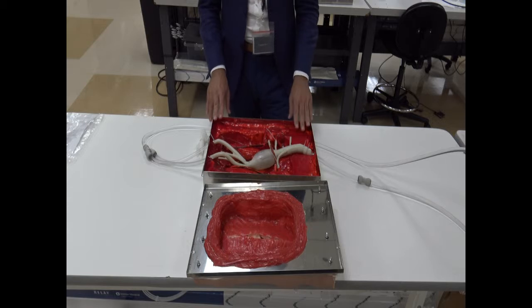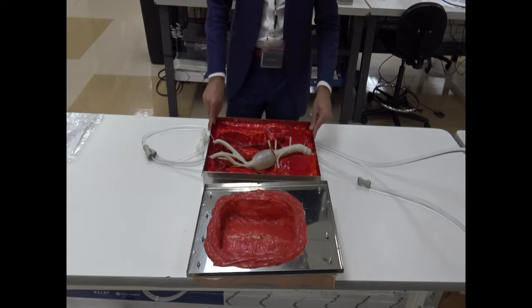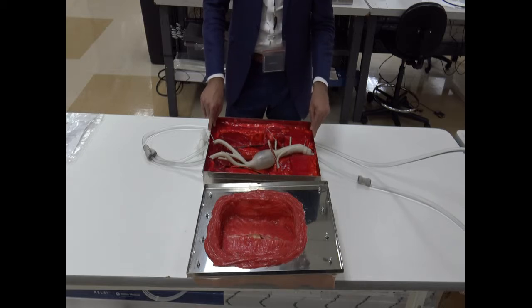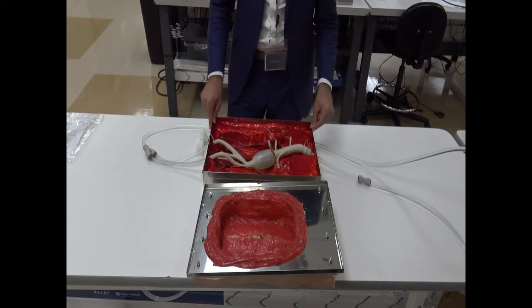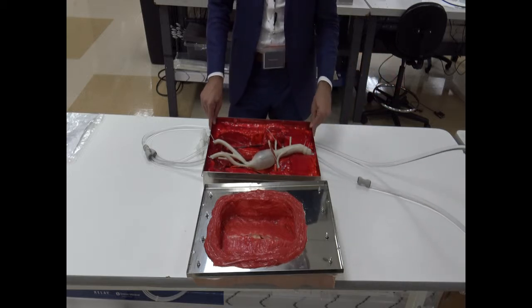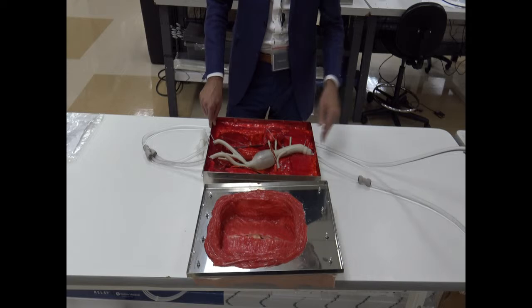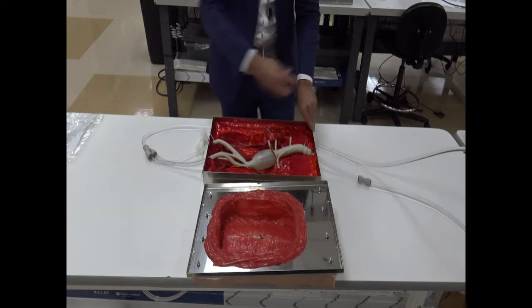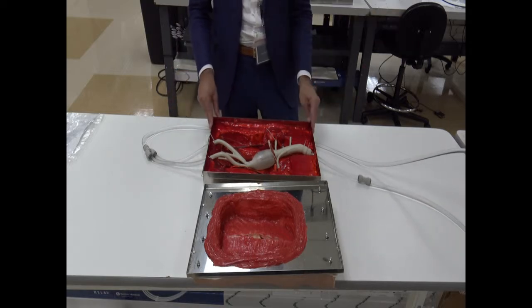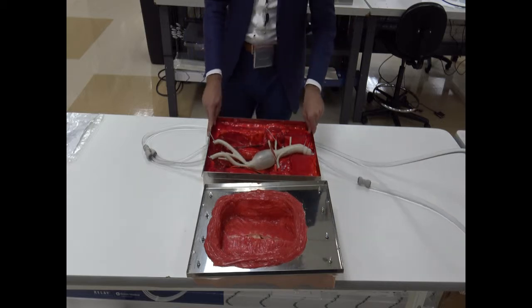All right, guys. So as you have seen, the pump is working. The water is flowing. We just wanted to finalize by sharing with you a couple of tips. The first one is that you might need to refill your reservoir after the pump has been doing a full cycle. The reason why is because all the water that is going to be occupying the volume within the pipes is going to leave your reservoir very empty, and you might need to get another second load in order to run the demonstration.